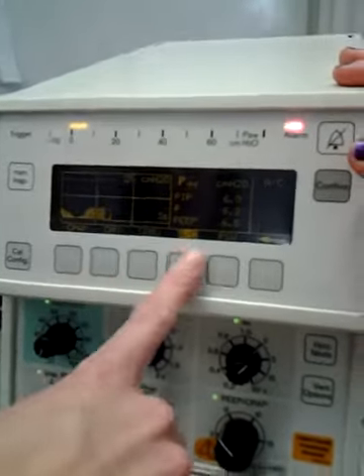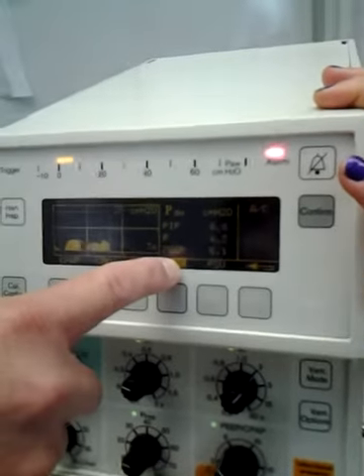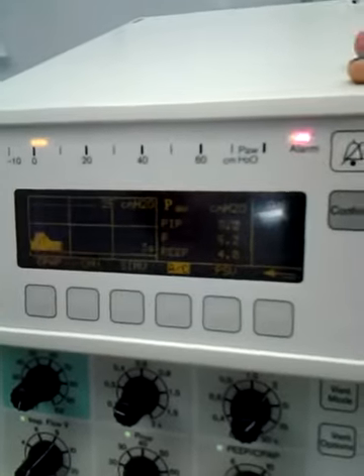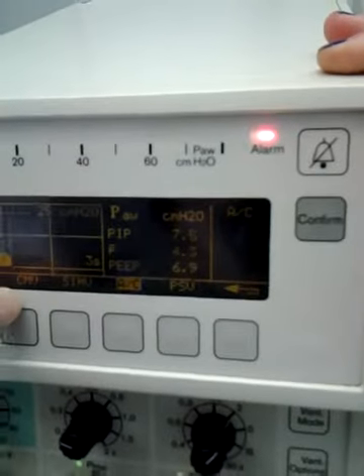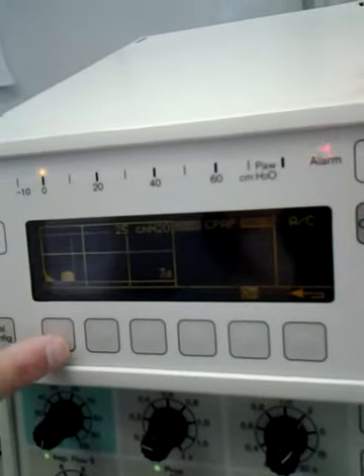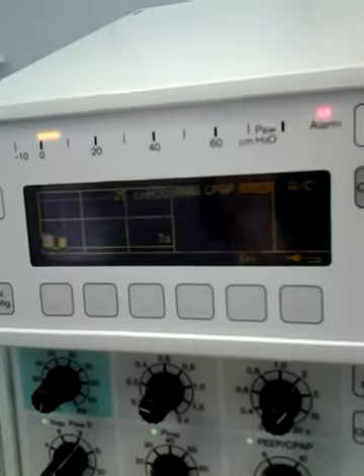Continuous mechanical ventilation and assist control: this is going to let them breathe. This is going to let them assist. This is going to lock them out on this. And the CPAP, CPAP's just on, so it's just going to give them, like if you're doing nasal CPAP, all you're really going to set is this.